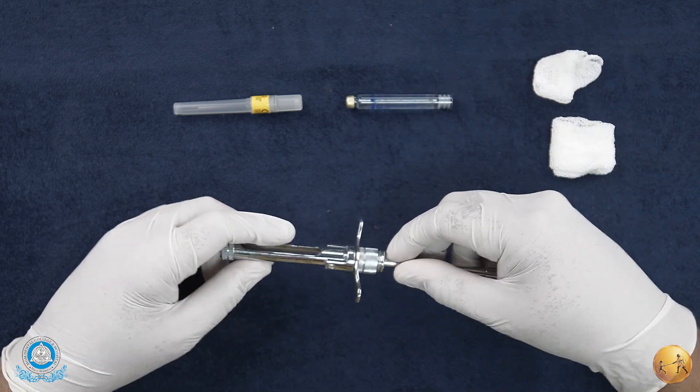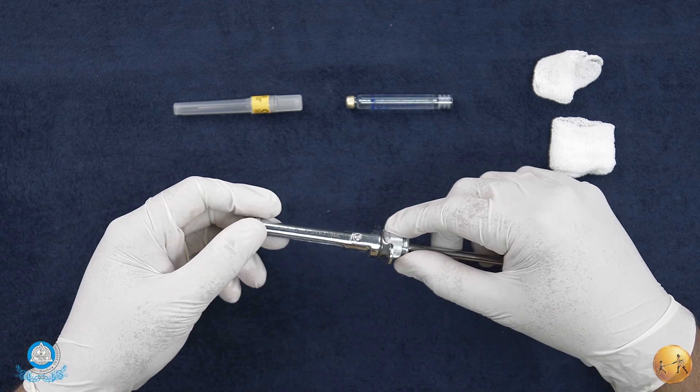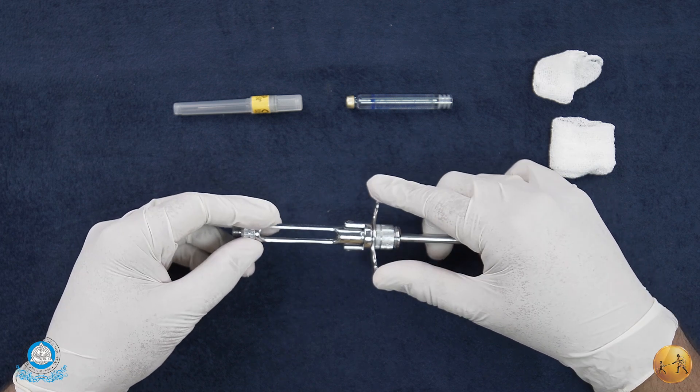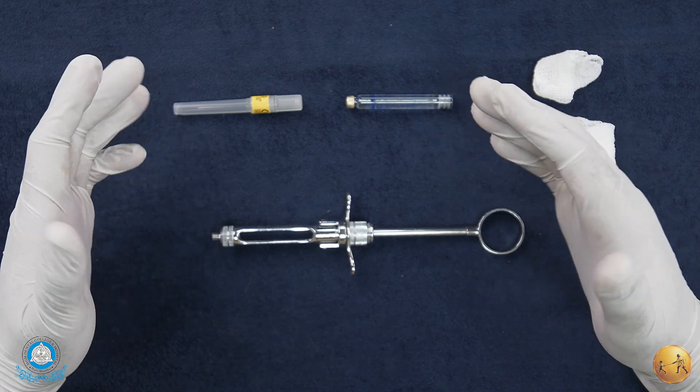To talk more in detail, generally it's preferred to have aspirating syringes. You can clearly see the 1.8 ml mark - that means they are custom made for the 1.8 ml cartridge.